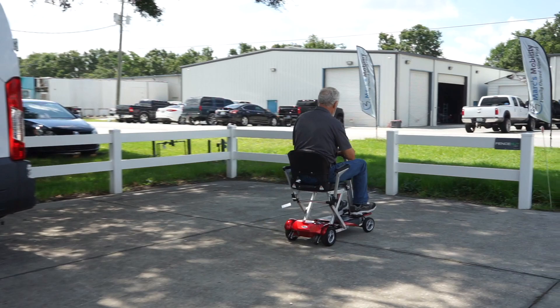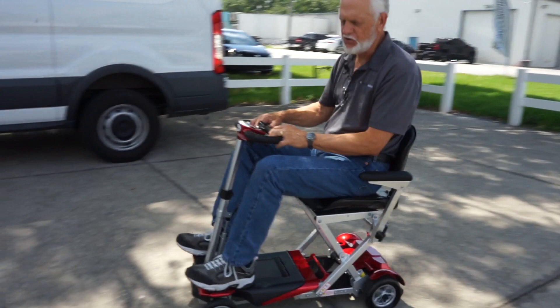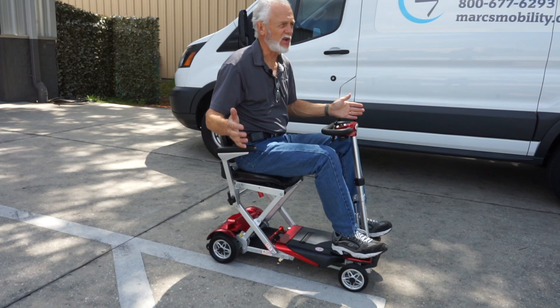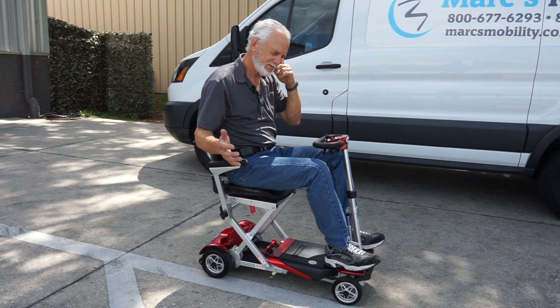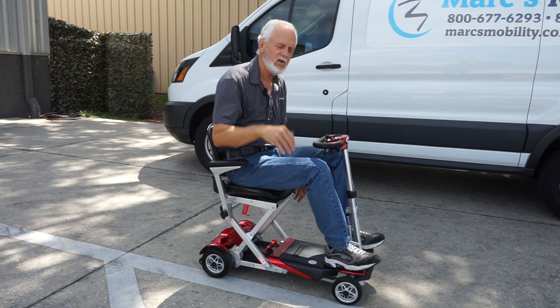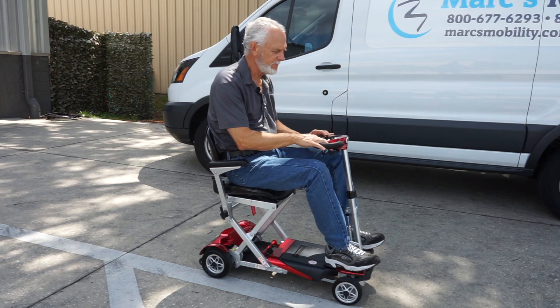This is the new revamp Enhanced Mobility Transformer. When you stop, it'll stop within a couple feet because it has electromagnetic brakes in the motor. So even if you're going downhill, it will not go any faster than what you've set. Even uphill or downhill, you can actually stop in the middle of a hill — it'll stop right there. It's all built into the motor.